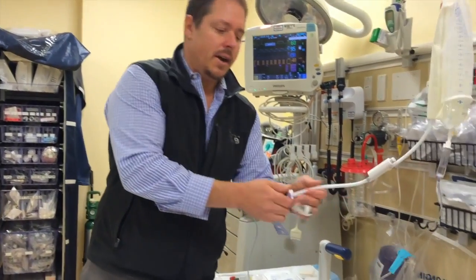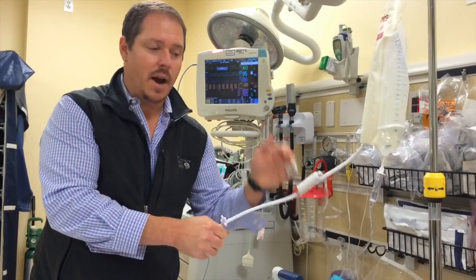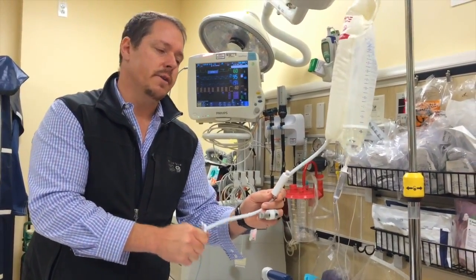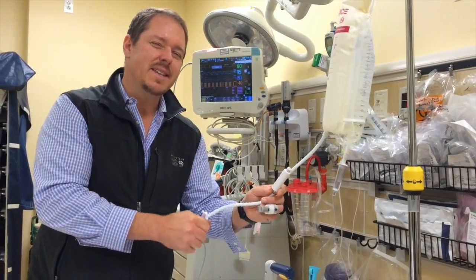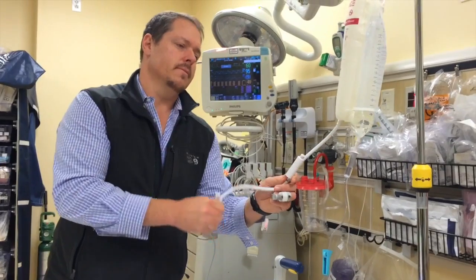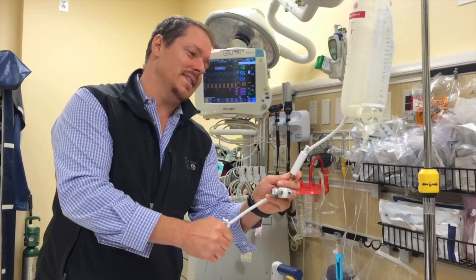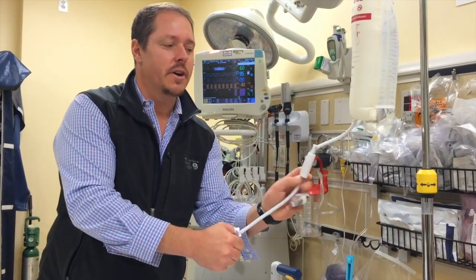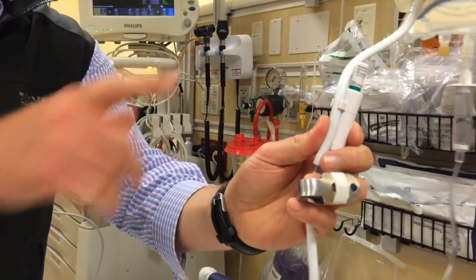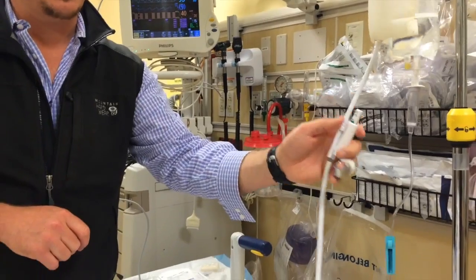Typically once it's attached to the patient and after priming, we go ahead and pump the pressure bag up to about 200 to 250, which for CVP is less mission critical than it is for art lines. Just basically go until you see green — once you see green, you're at a good pressure. If you're constantly flushing through the bag, you're going to have to pump it back up, so always keep an eye on it.